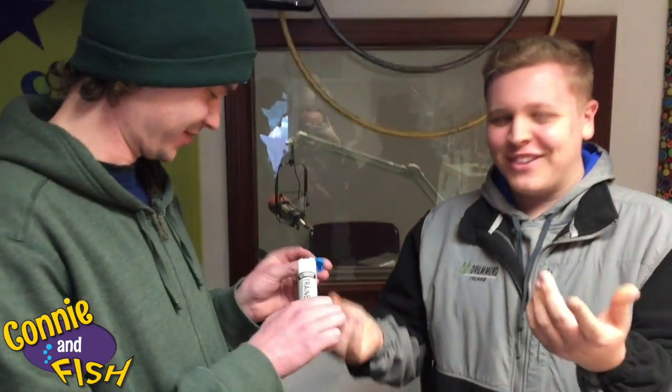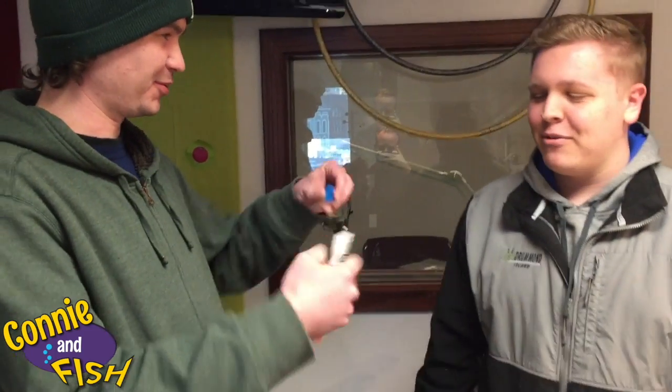So this is a training EpiPen. On each EpiPen on the backside there are instructions on how to use it in case you don't know how. Pretty much it's easy — you're going to pop this blue piece off.